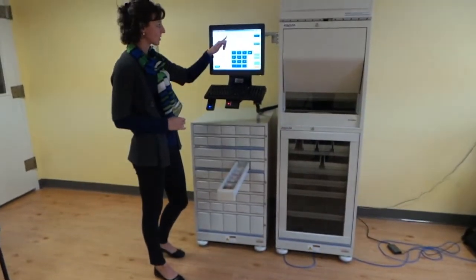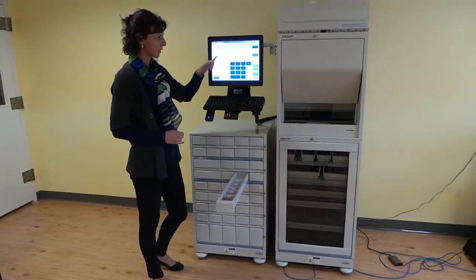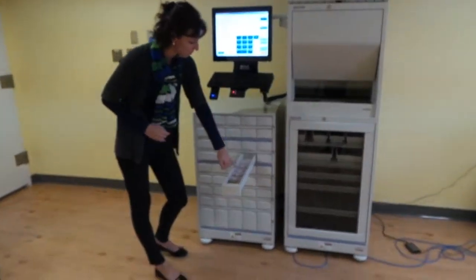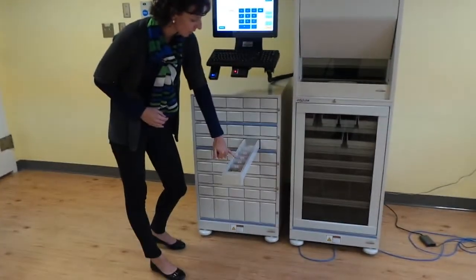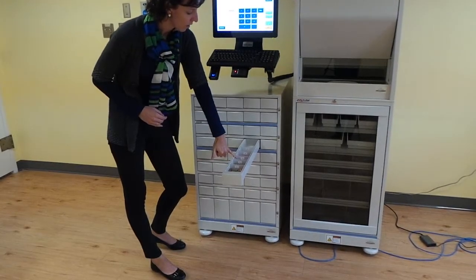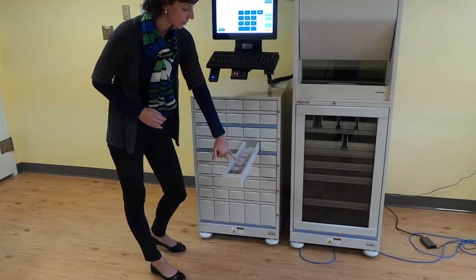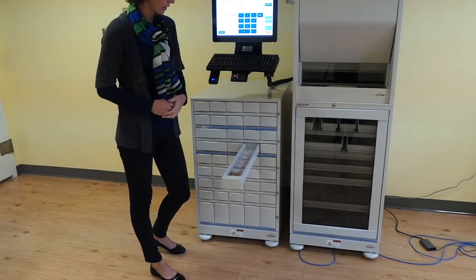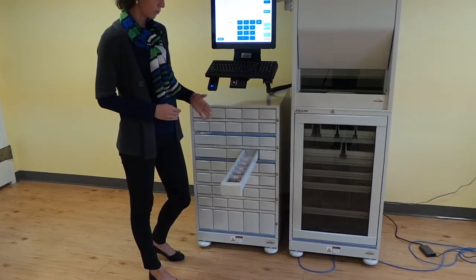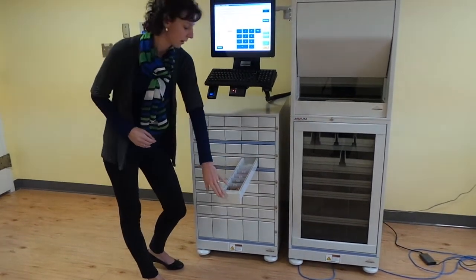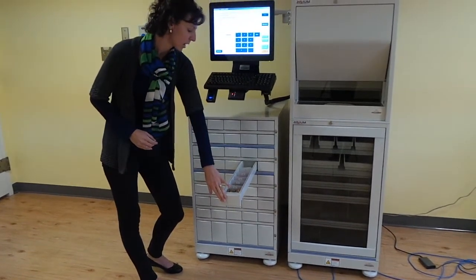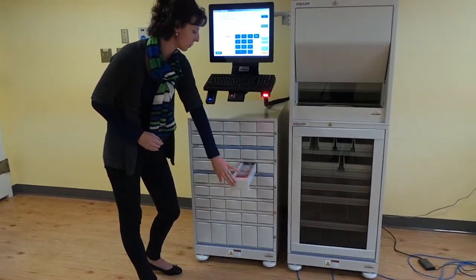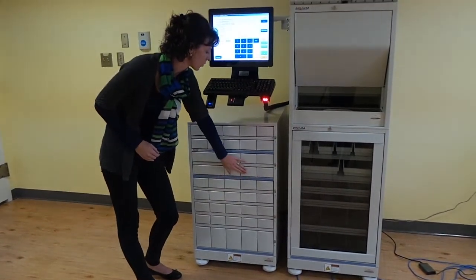In this case, spot C refers to spot C right here. The medication will always be in the spot in front of the letter. When you're done dispensing, simply close the door.